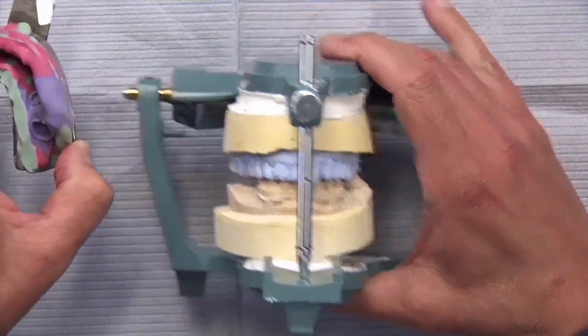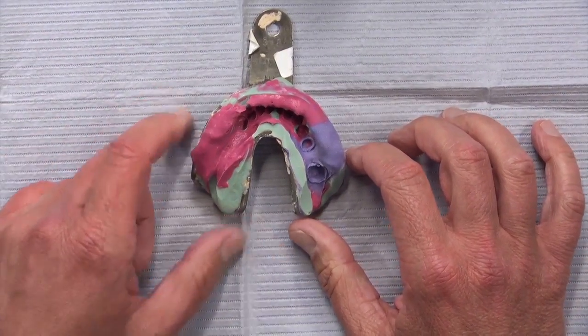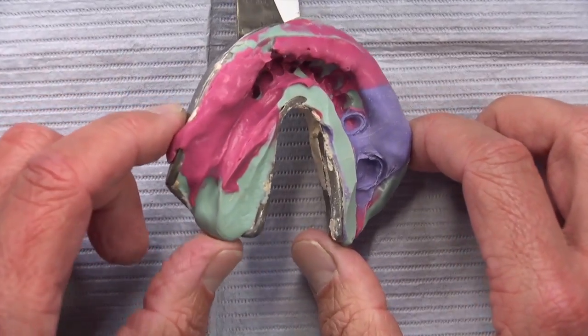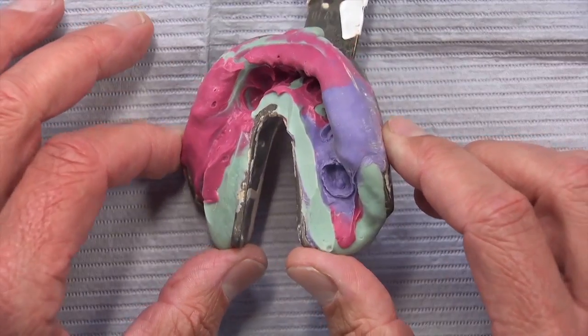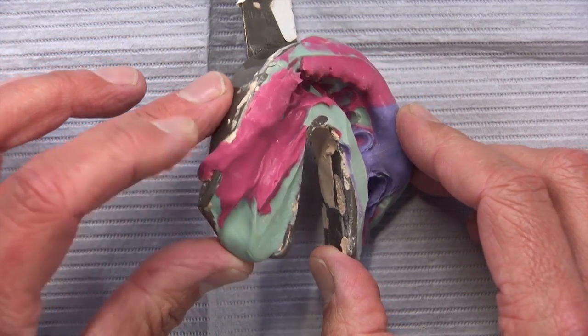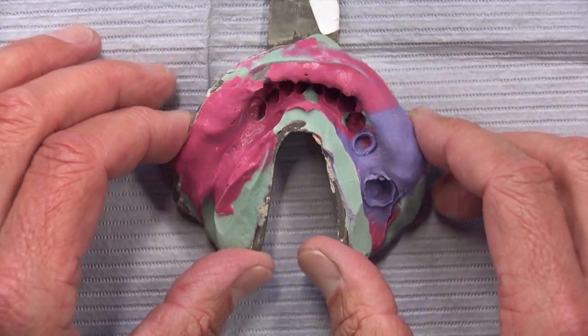This impression I want to show you is really not H&H, so I don't want the H&H people to get angry at me — I know this is not the way it's supposed to be done. This looks more like H&H&H; there are three layers here, so this would be the Triple H. I believe that was a wrestler — it's also a band from Vancouver, Hot Hot Heat, that I happen to like a lot.